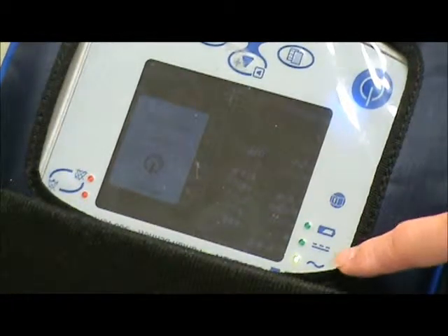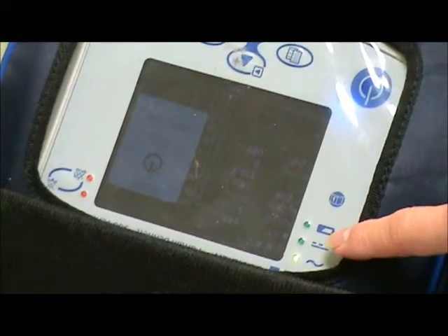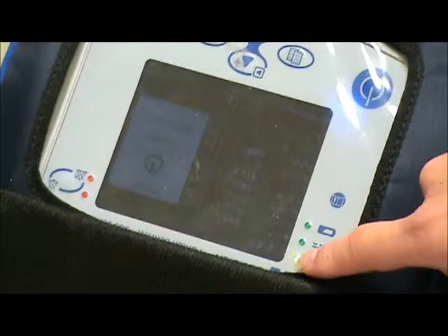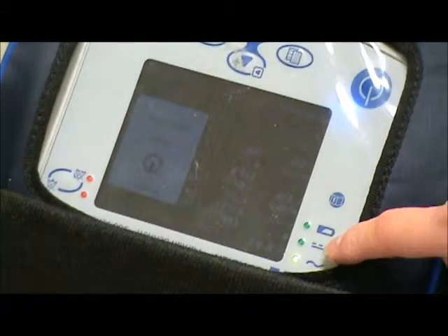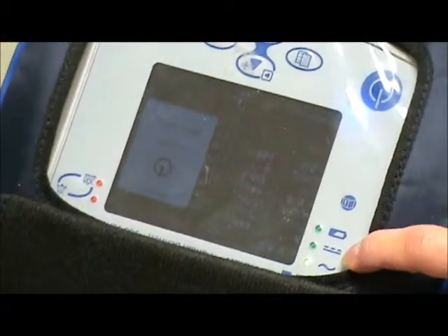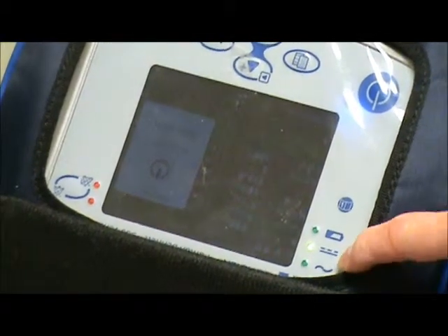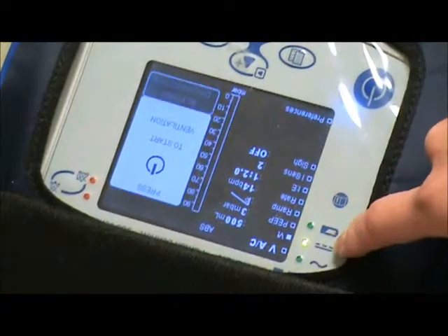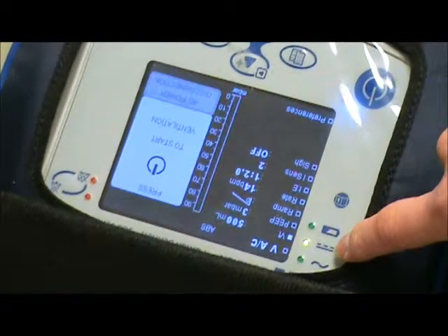When the power is switching from AC to DC — or in this case your wheelchair battery is connected — the light will light up beside the straight line with the dash dash dash. Now you see the light is lit up, which means the machine is running on the wheelchair battery right now.